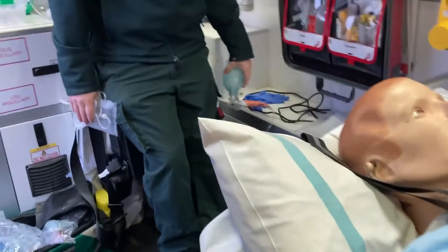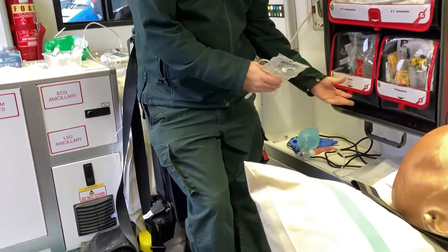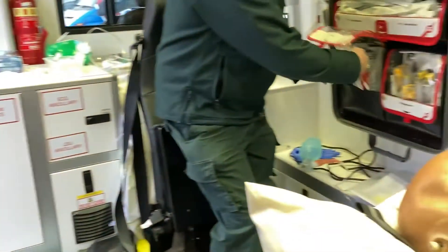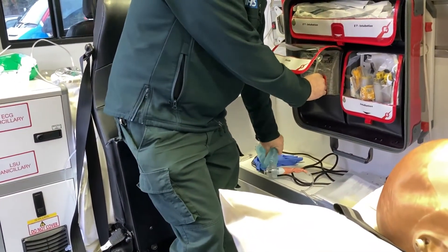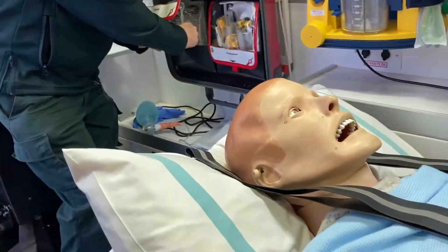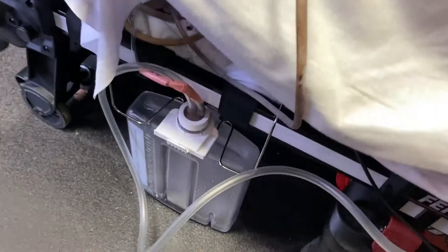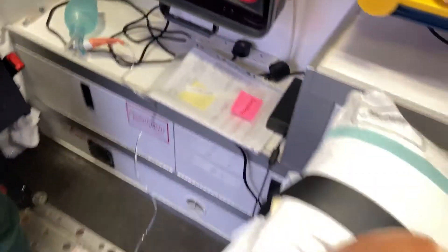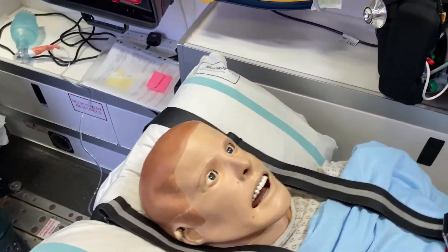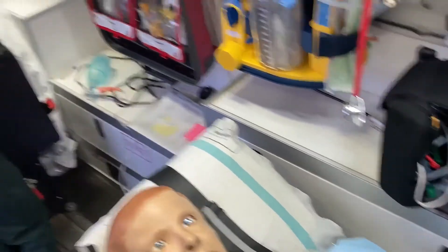So this means the facilitator can sit on this seat and the candidates sitting where I'm sitting will be able to check whether the chest drain is bubbling or not. The facilitator can then squeeze the bag valve mask and make it bubble or not as the case may be. It's a really simple way of doing it — all we've effectively done is run a tube all the way around to the back to a little paediatric bag valve mask, hidden from the candidates. An excellent little simulation trick.